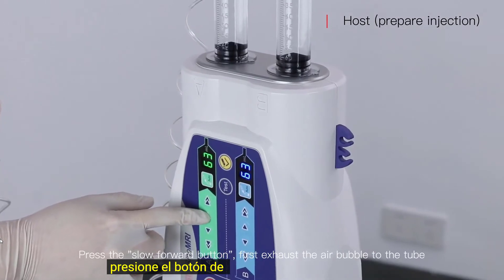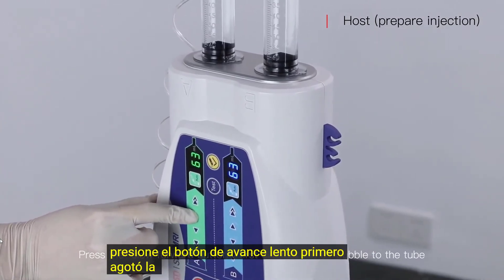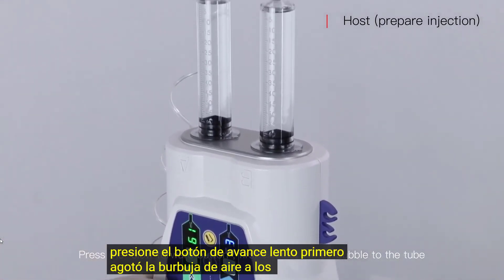Press the slow forward button to first exhaust the air bubbles from the tube.